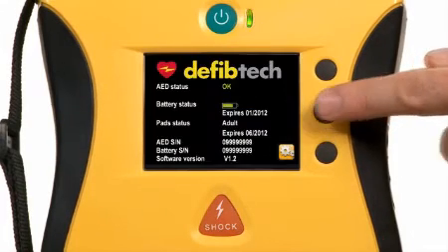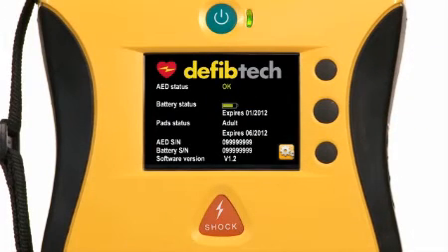Now that I've shown you why the View is so easy to use, let me show you why it's so easy to maintain. An AED always has to be rescue ready. That means making sure the batteries are charged and the pads are up to date. But how do you know they are? Even though the View has long lasting lithium batteries.